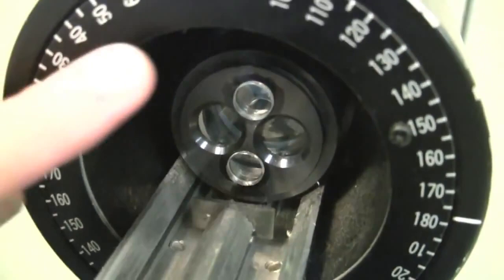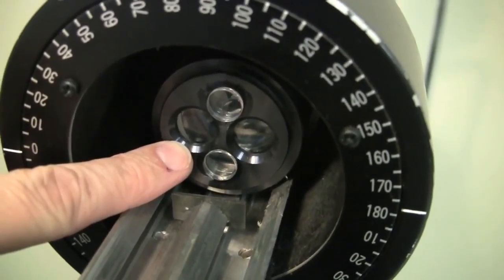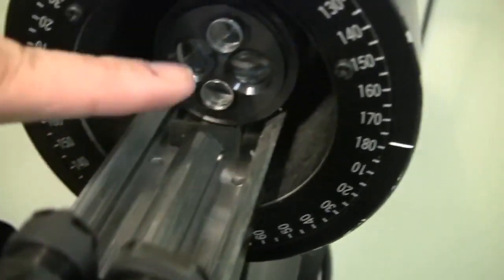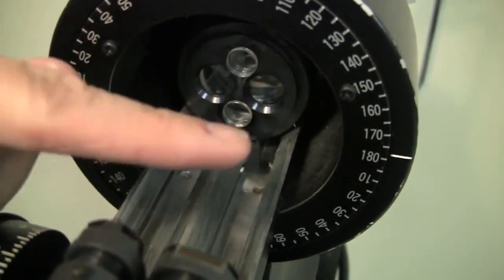If we go back to this view and look a little further inside the instrument, what you can see is this little splitting mechanism, which has basically split the light going through towards you away from the patient into two beams, one that is used for the horizontal prism and one that is used for the vertical prism. So this one helps us measure the horizontal meridian of the cornea, this one helps us measure the vertical.